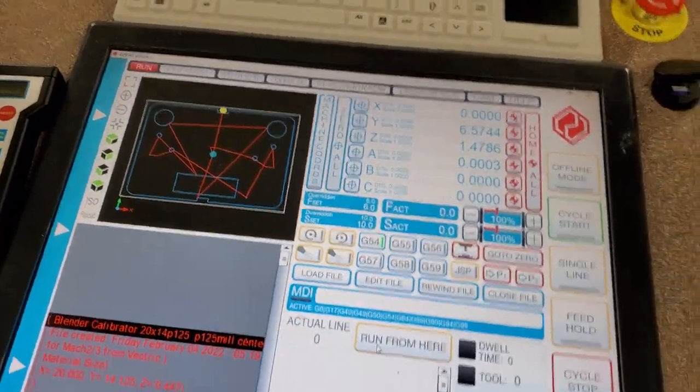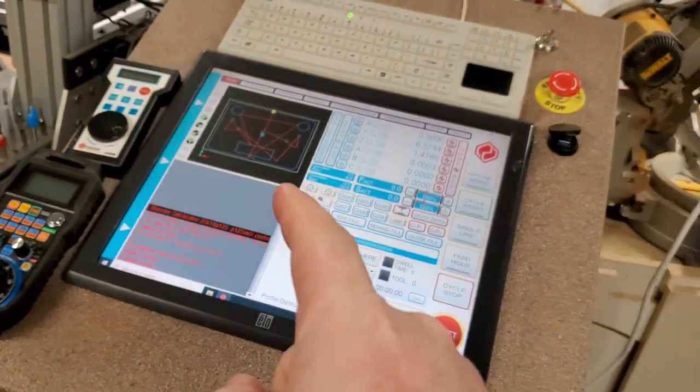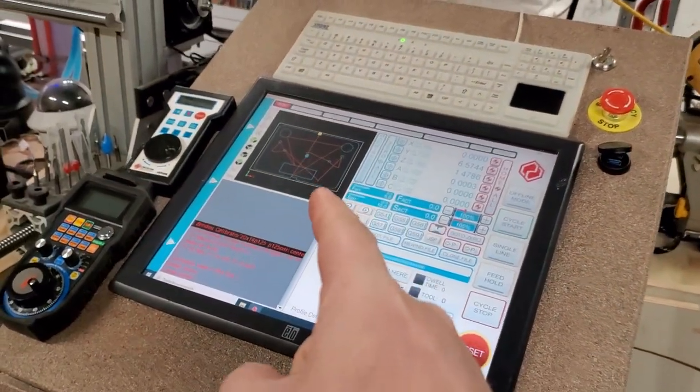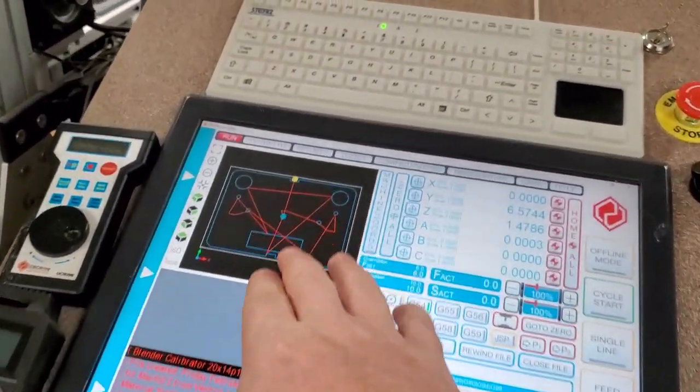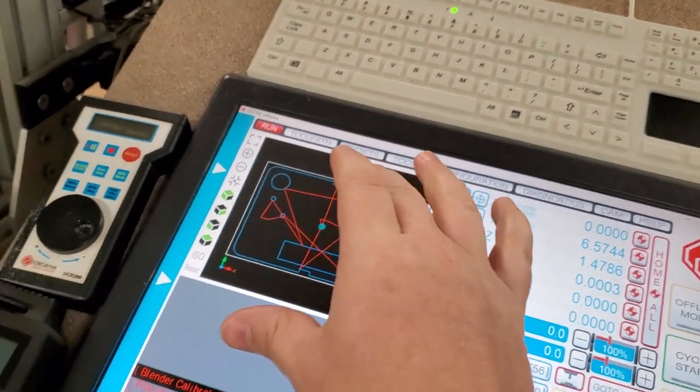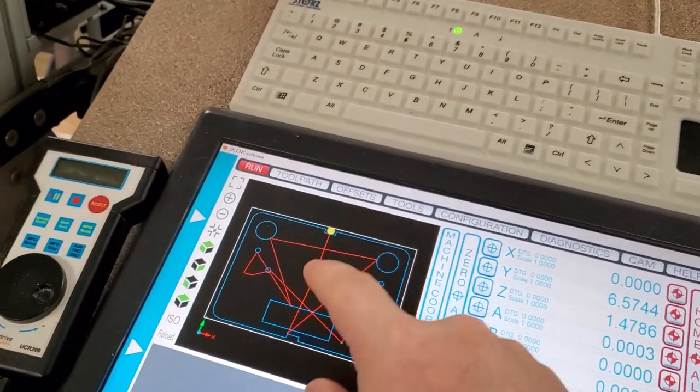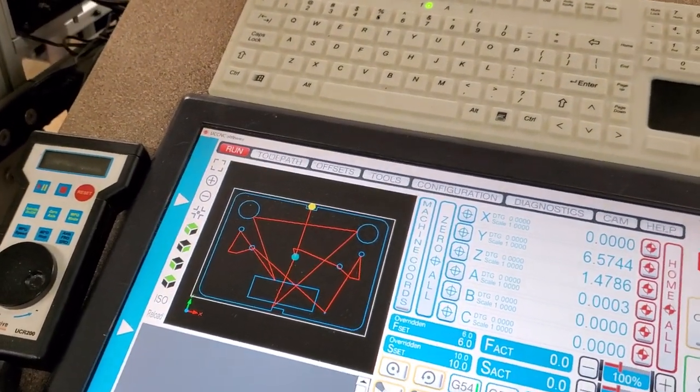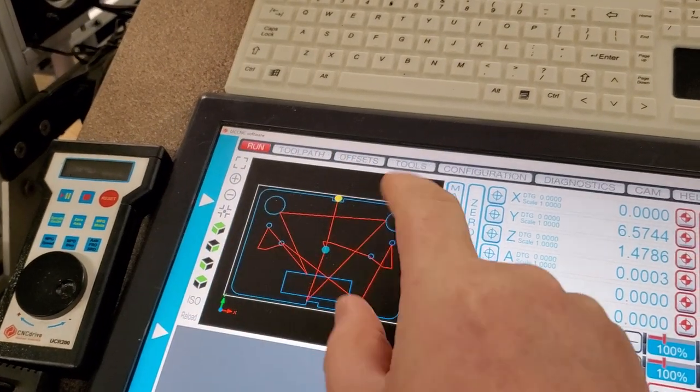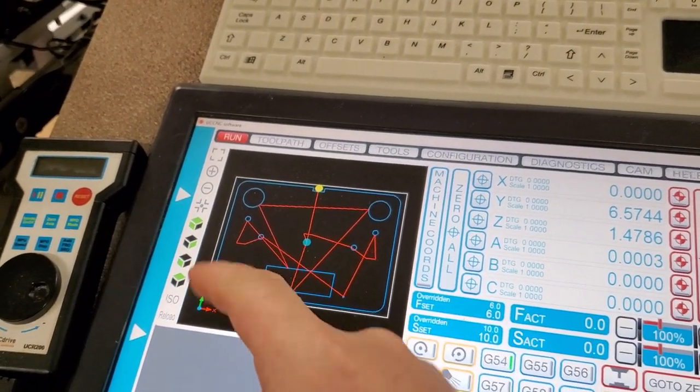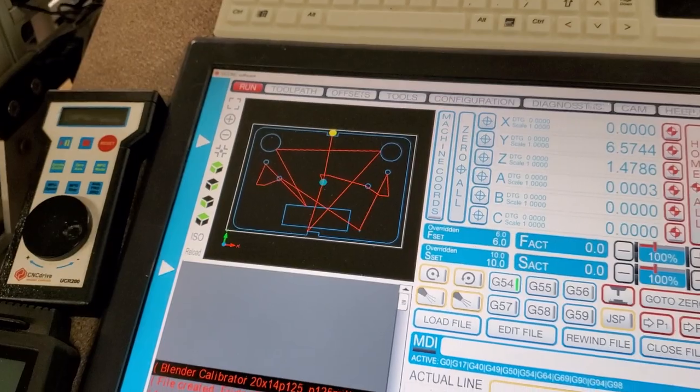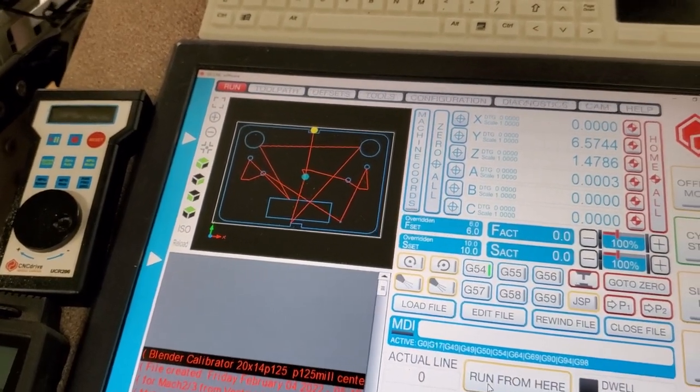So the first thing I had to do is I went ahead and modeled in CAM software what the new baffle plate was going to look like and this baffle plate right here is going to hold the flow meter, a couple regulators for med air and oxygen, and then it's also going to have a digital O2 meter inside it.